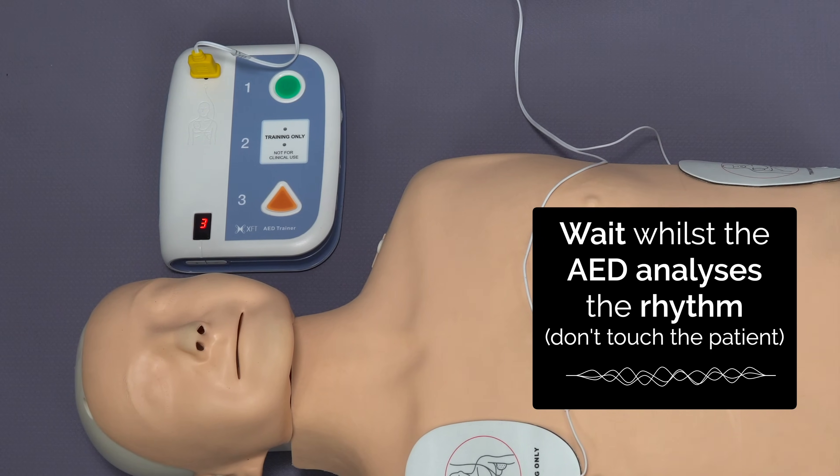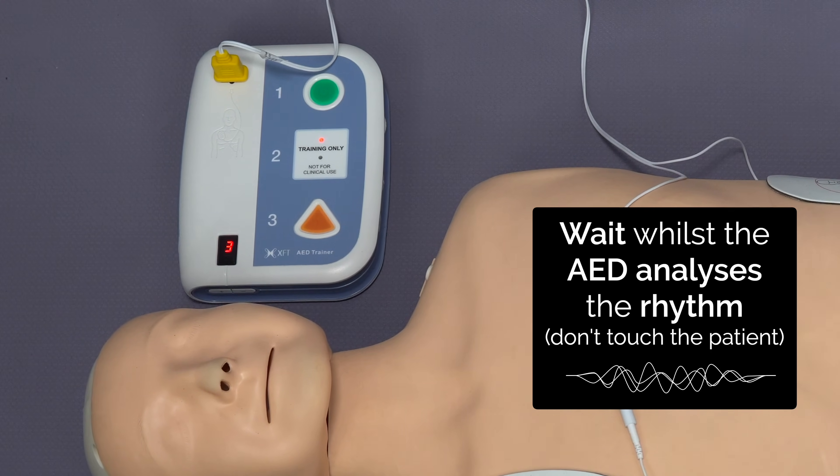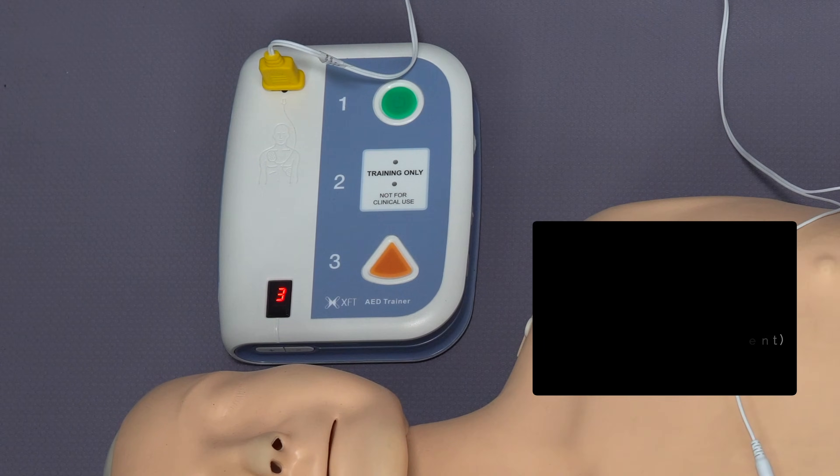Then you need to follow the instructions of the defibrillator as it analyzes the rhythm, and it will tell you whether a shock is advised or not.